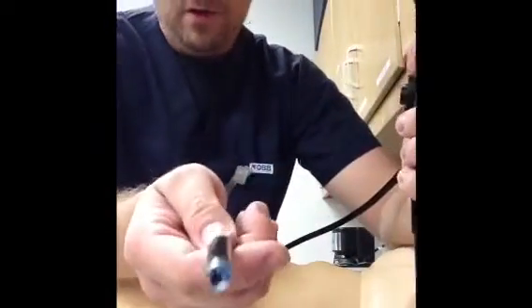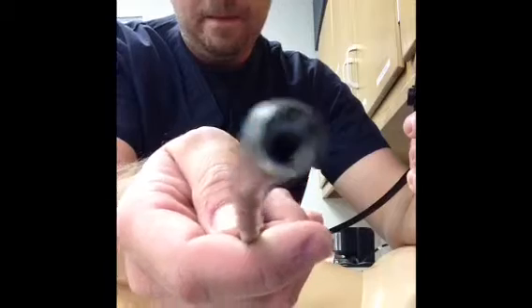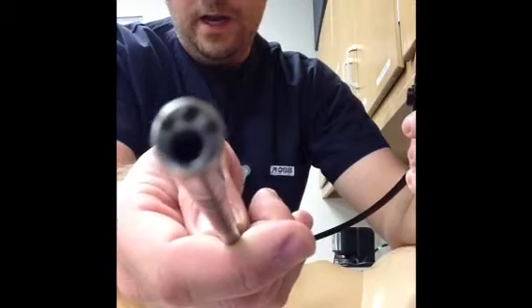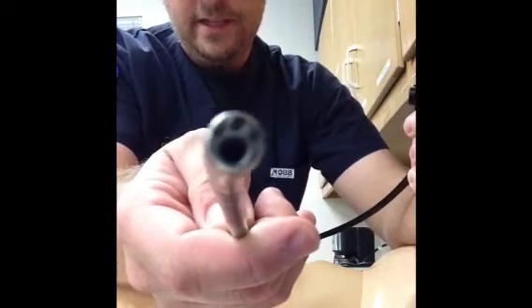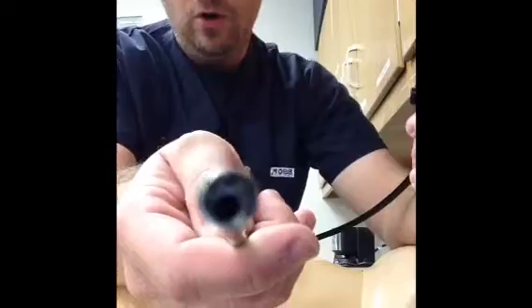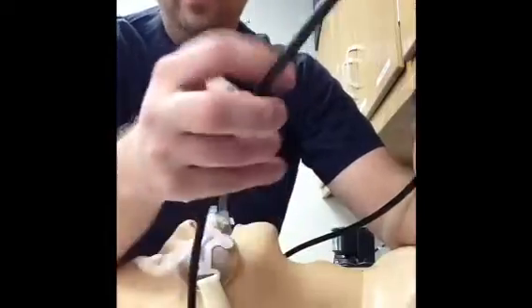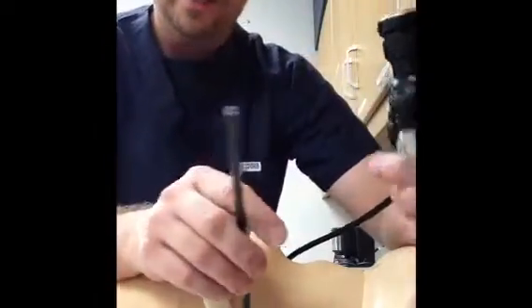So at the end of the bronchoscope, there are some lights — you see a series of two lights, a camera, and then there's a large hole, and that hole allows us to do a couple of things that I'll talk about.